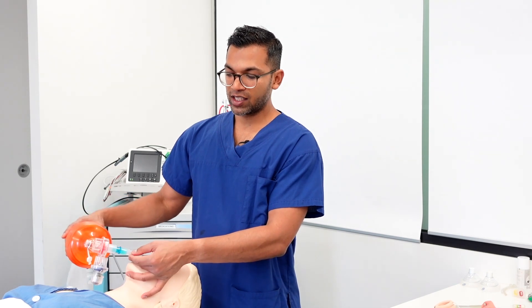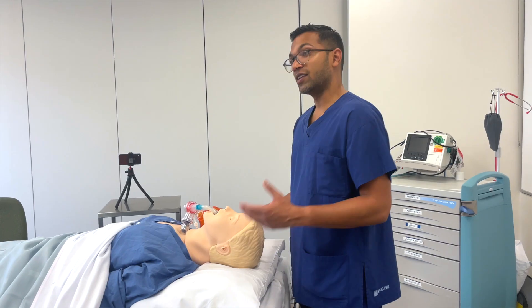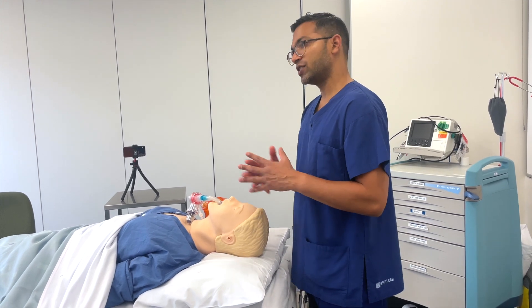Specifically for LMAs, just like having a mask on your face or an endotracheal tube, the size and the type are mainly the things I can adjust. This one I've got is a size 4. If there's too much of a leak, I can either use a size 5 LMA to go up in size or put a bit more air in the cuff. Generally speaking, you want to go for a higher size and put less air in the cuff — that minimizes the chance of trauma to the airway.